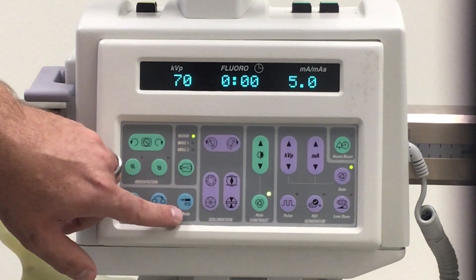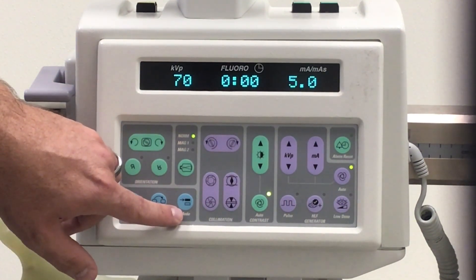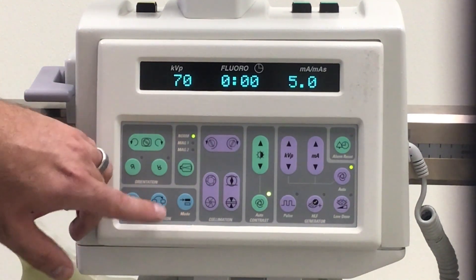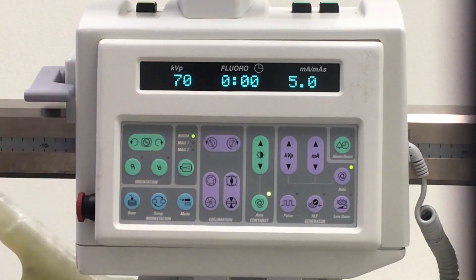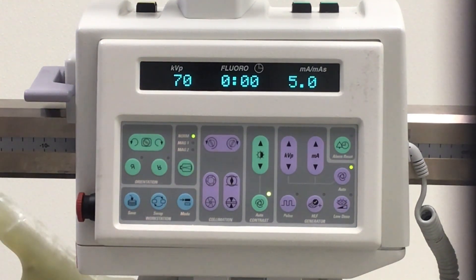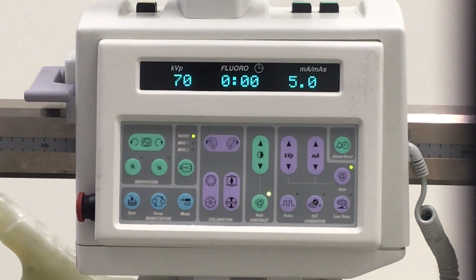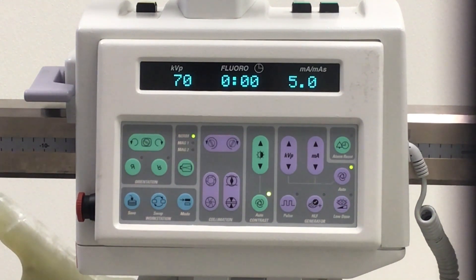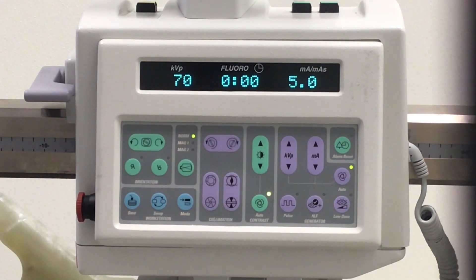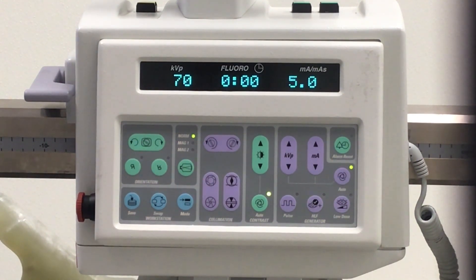This button here is the mode button. This button will allow you to go directly into your subtraction mode so you will be easily set up for subtraction.